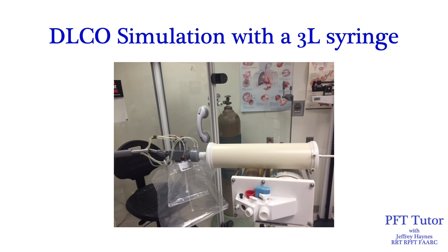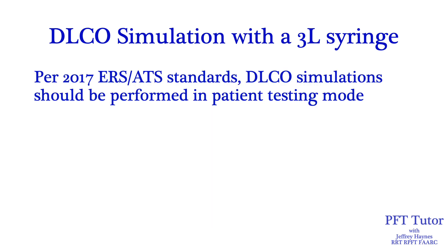As you can see here, the very sophisticated Hans Rudolf DLCO simulator makes a nice stand for my 3.0-liter syringe. There are some manufacturers who have a DLCO simulation mode in their software, and there's nothing wrong with that, but the ERS ATS standards recommend performing DLCO simulation in patient testing mode, so I'm going to show you how to perform DLCO simulation using that methodology.